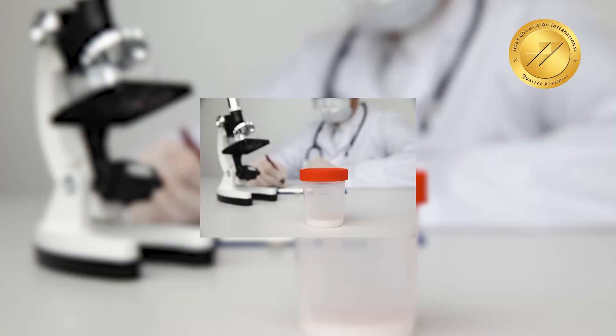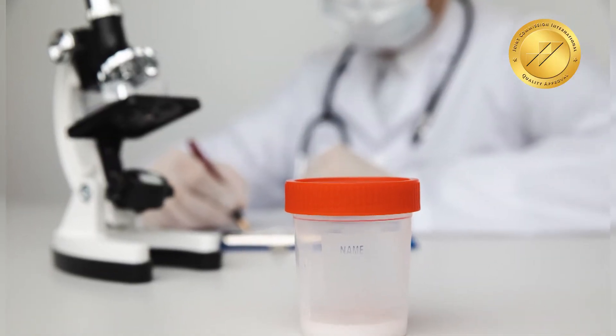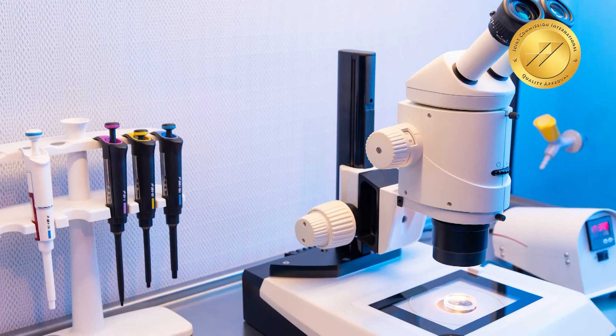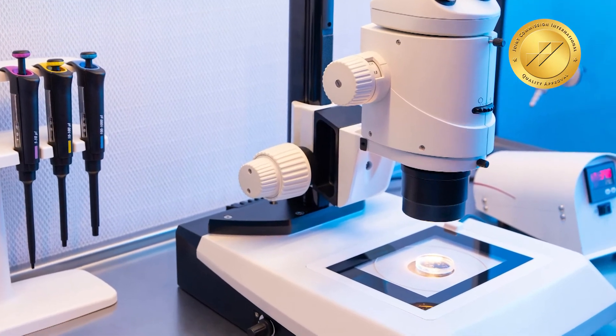Semen analysis report is divided into two parts. The first is the macroscopic observation, which includes the volume, pH, colour of the sample, and liquification and viscosity. In the microscopic analysis, the three major factors analyzed are sperm concentration, motility, and morphology.